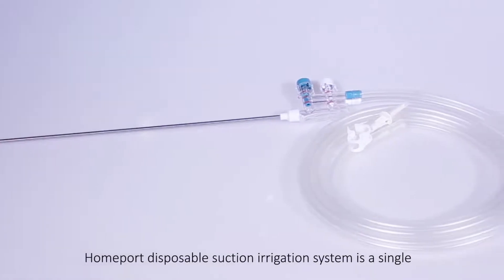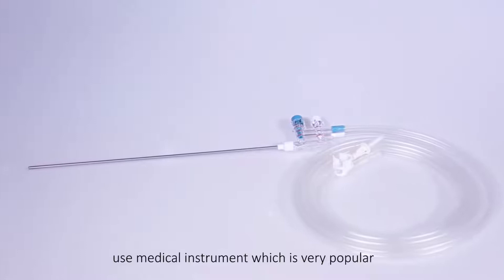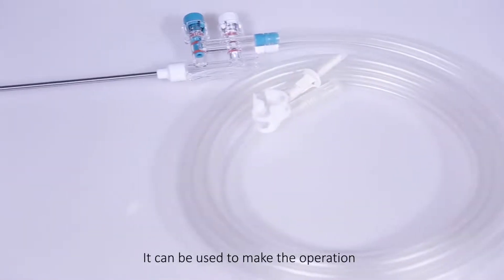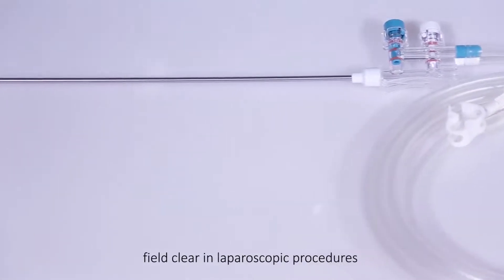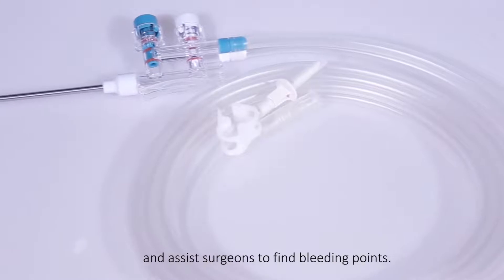Homeport Disposable Suction Irrigation System is a single-use medical instrument which is very popular in modern laparoscopic surgeries. It can be used to make the operational field clear in laparoscopic procedures and assist surgeons to find bleeding points.